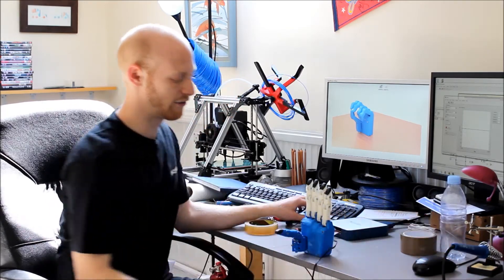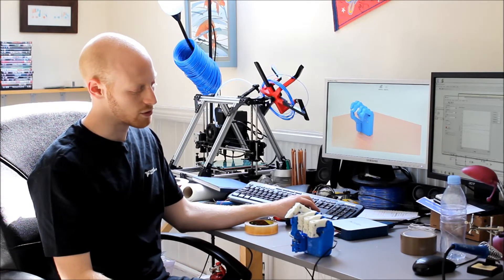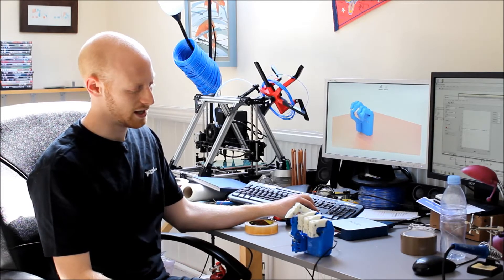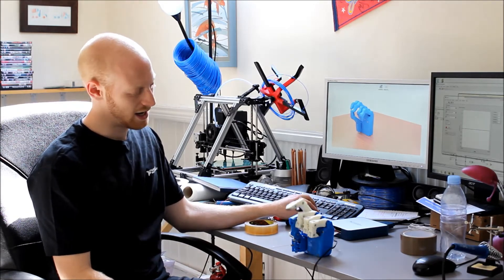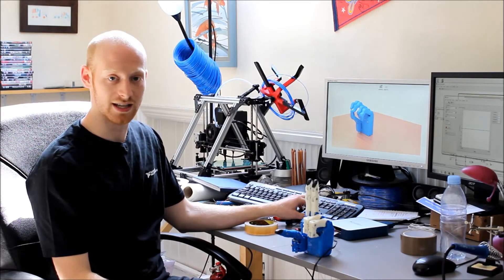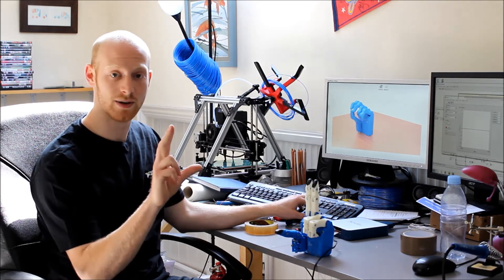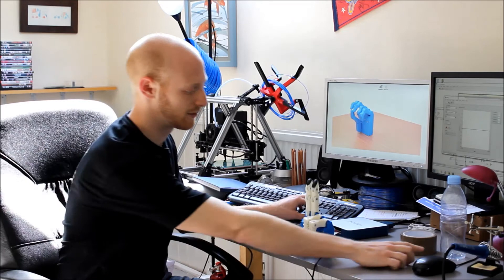Now if you want a finer grip, that's possible as well. So if I go from a closed position, you can press another button. And I'm going to limit the movement to just these three fingers with the first two index and middle and the thumb.